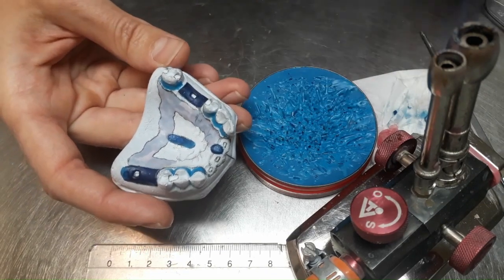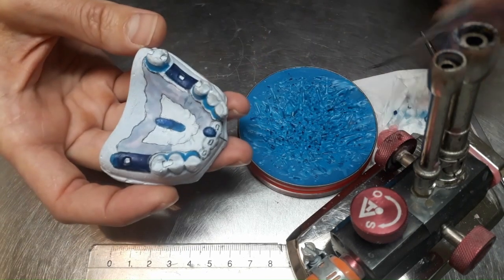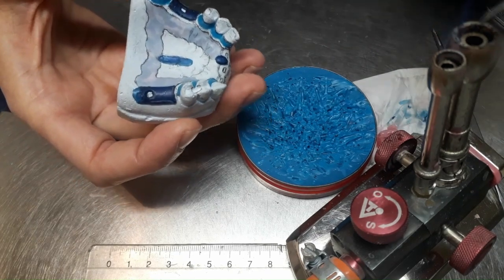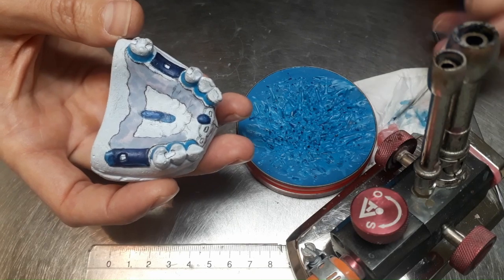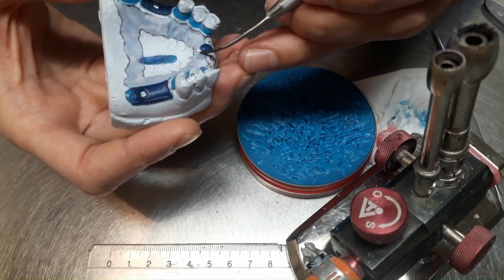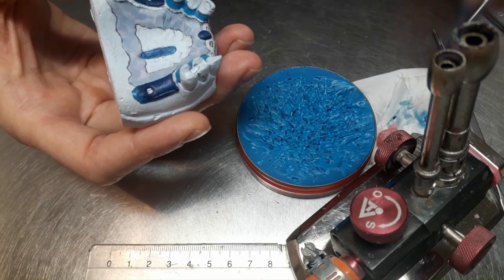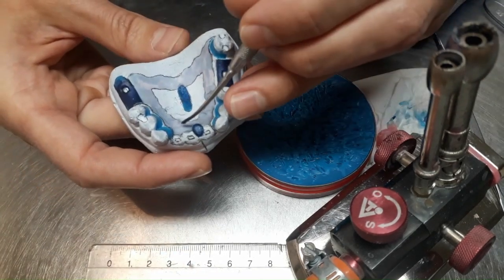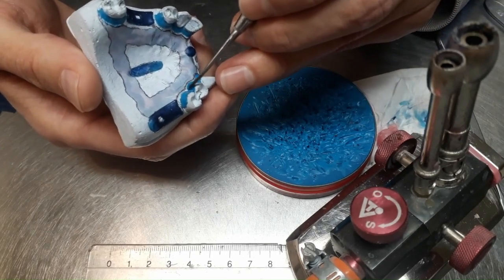So now I place a little bit of a foil there, which is a very, very thin layer of wax. You can't tell how much, it's very little. I have to take care for the palatal rugae to make sure that they are protected. You see, this is a pink wax. It's the one used for the basis of the dentures in general. So this is very thin, tiny, just to make sure that the mucosa is protected. Will be protected, right, when we transform this into a metal framework. Well, actually not this, but the pattern that we will create on the duplicate model, which is a copy of what we see now.